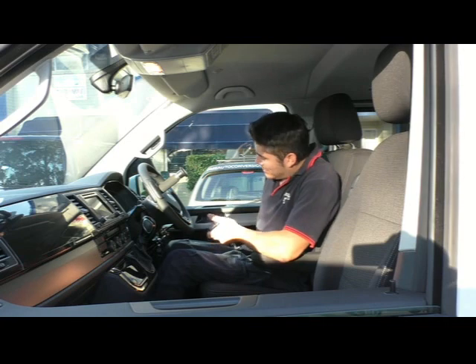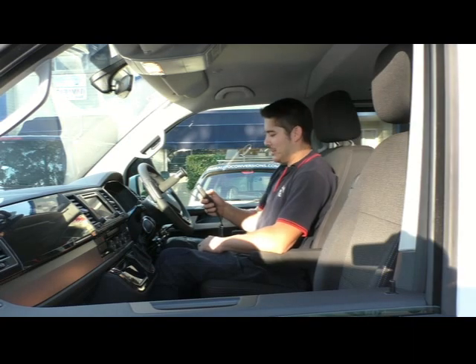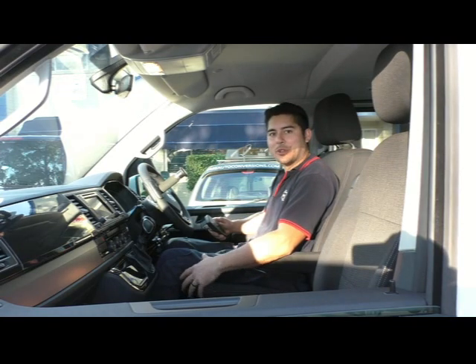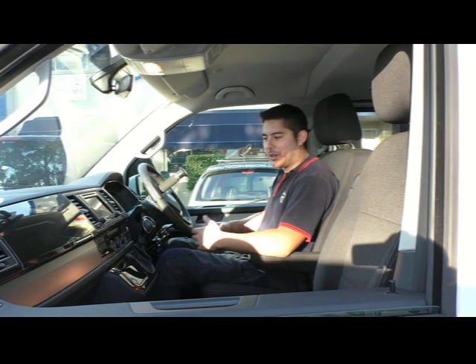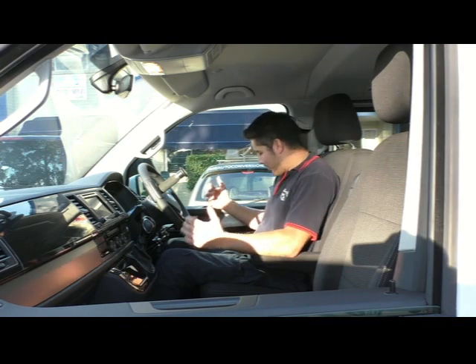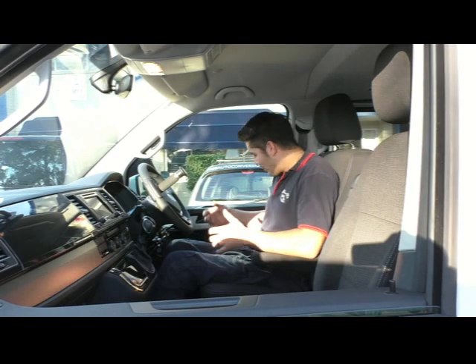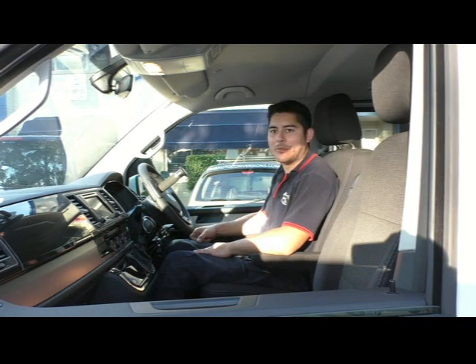You've got your wheelchair in the back and it's going to stay nice and dry. You've got a bit of height adjustment in here as well — you can come up and down. The Paravan seat base also has an emergency release function, so in case there's a power outage for whatever reason in your vehicle, they can always get you out. It's that easy getting in and out of the vehicle — wheelchair in, you're in your driving position, driving from the seat. The vehicle seat is much more comfortable than traveling in a wheelchair. You've got all the features of the standard seat, including the airbags and everything — you don't have to disable any of them. That's the transfer self-drive.